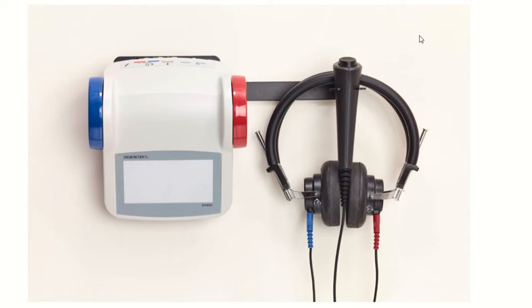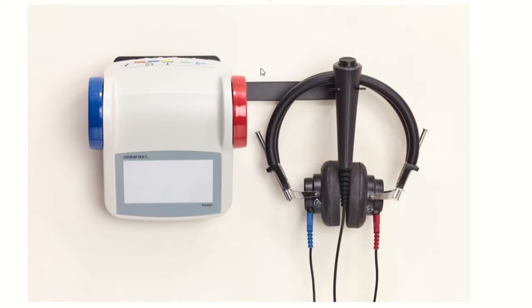So the image here is the RA-660 audiometer. The audiometer and the acoustic simulator are built in, so it's one device and every unit comes with a wall mount. You could see this device is actually mounted. This would be what it would look like on the inside of a booth.